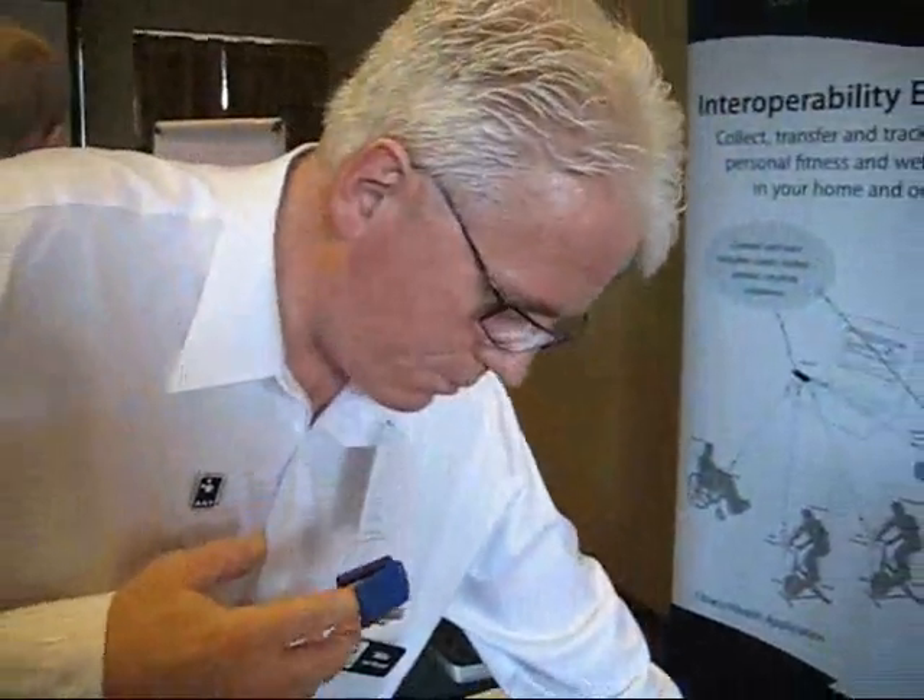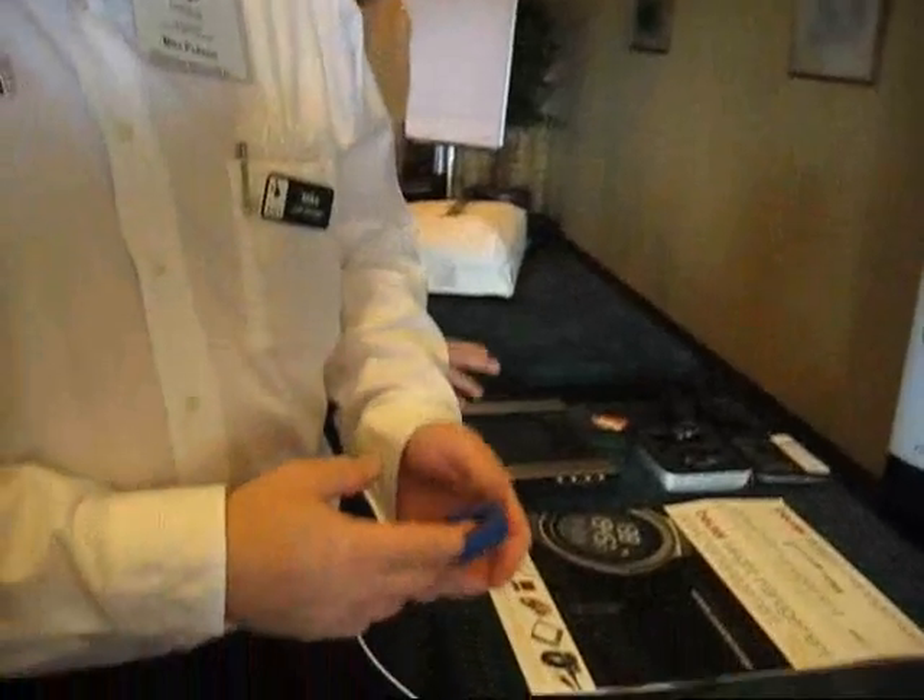So is the goal to replace that cable? Absolutely. I think the goal for everybody is to take the cables away and to take the complexity away.